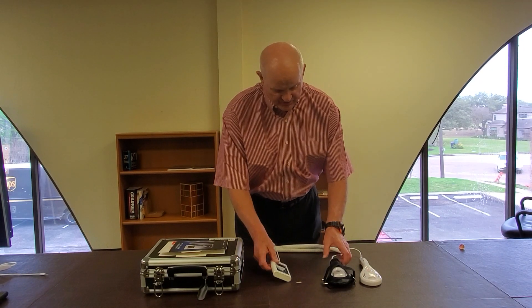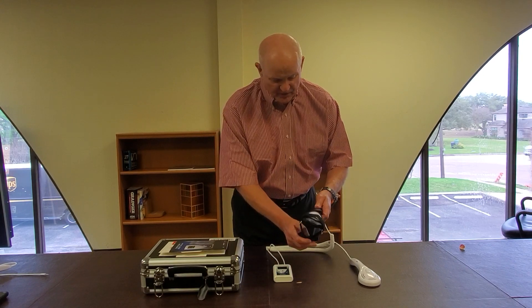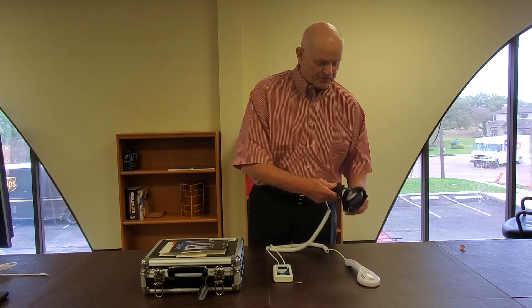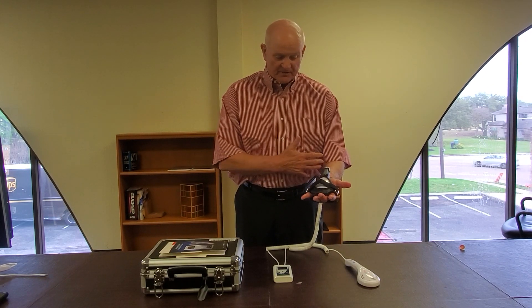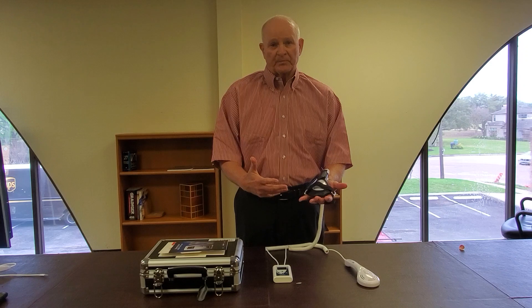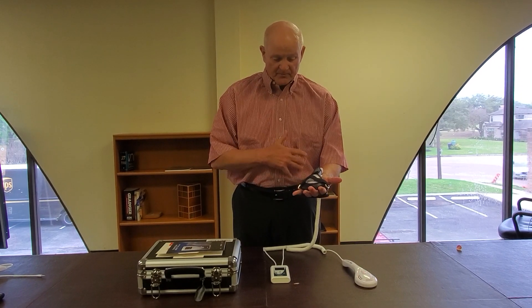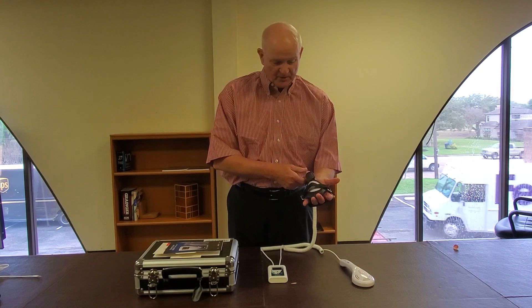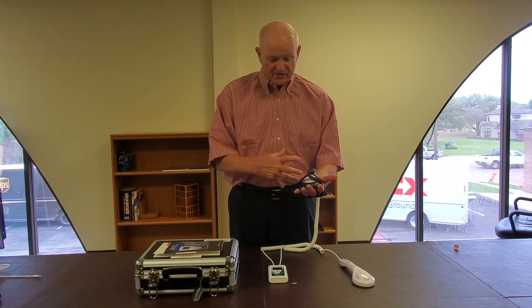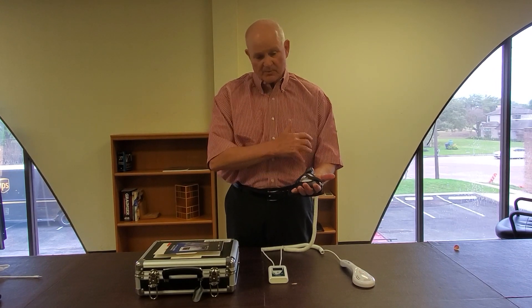In addition to that, we've made a hands-free model where you can Velcro strap the laser probes anywhere on your body extremities, from your head to your toe. That was another feature we developed with this new smart laser — the hands-free capability. So you can put them on a patient, dial it up to 10 minutes, and walk out of the room.